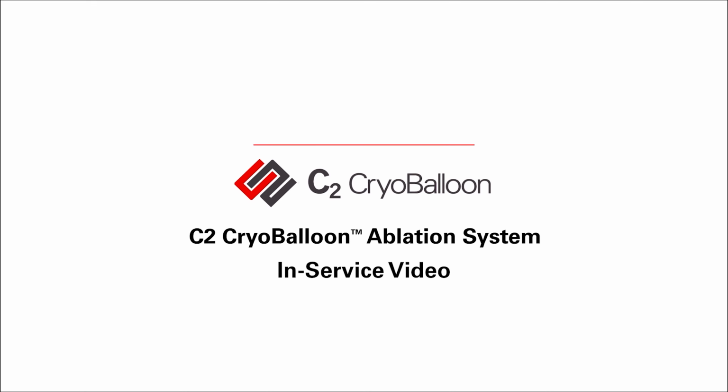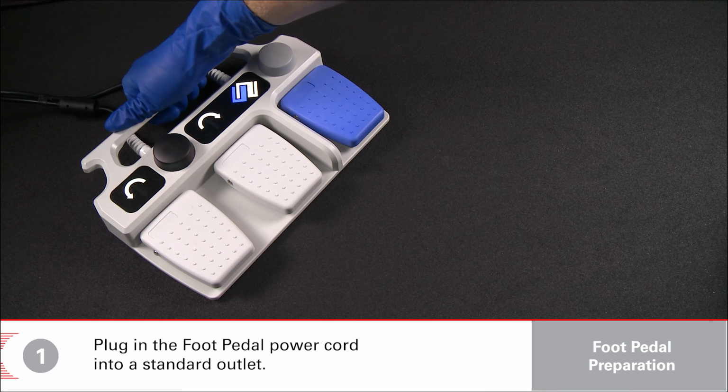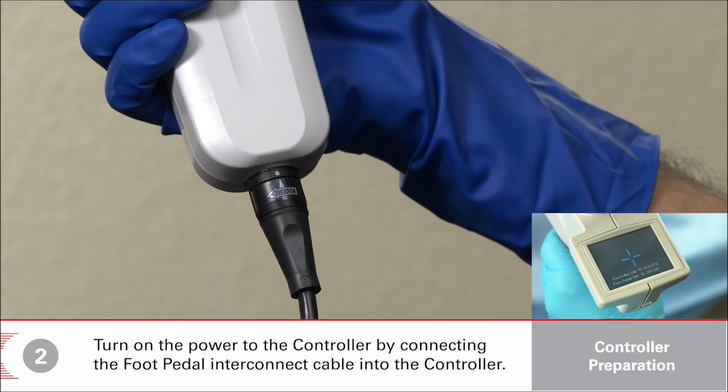C2 CryoBalloon Ablation System in-service video. Plug in the foot pedal power cord into a standard outlet. Turn on the power to the controller by connecting the foot pedal interconnect cable into the controller.